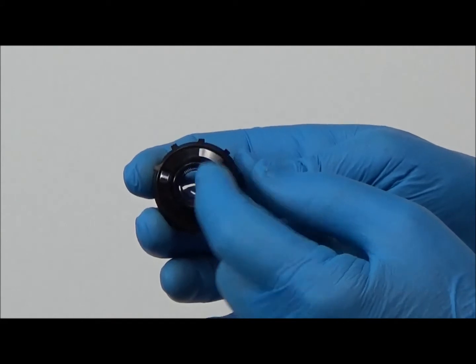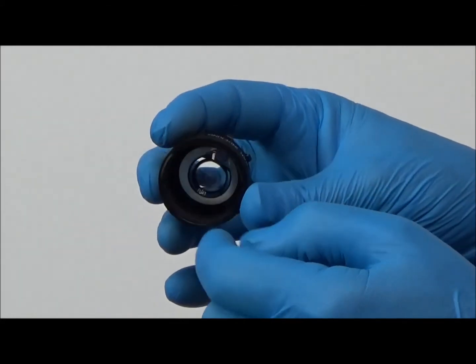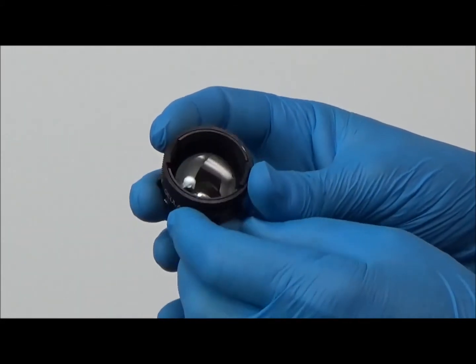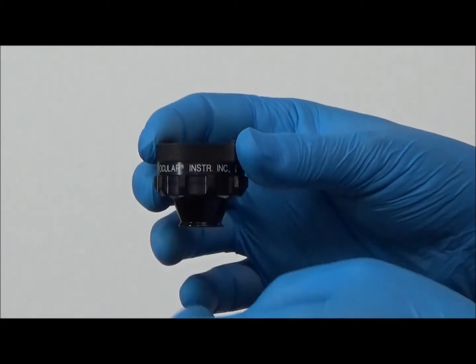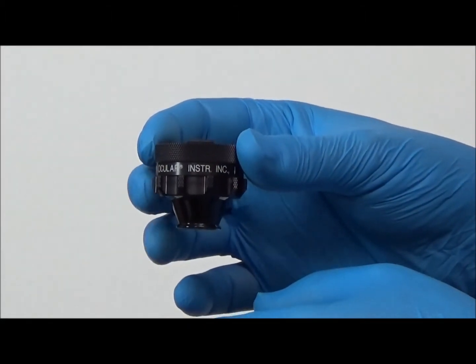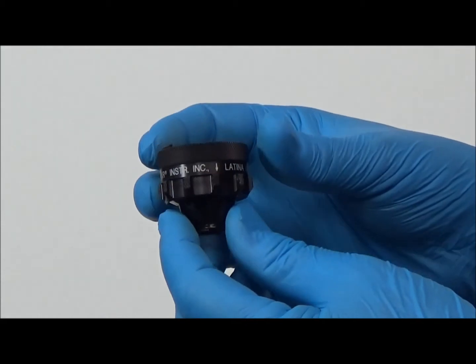The indexing feature and the number of indexing stops, or clicks, for these gonioscopy lenses is based on the specific lens, internal reference bar design, and the intended procedure.